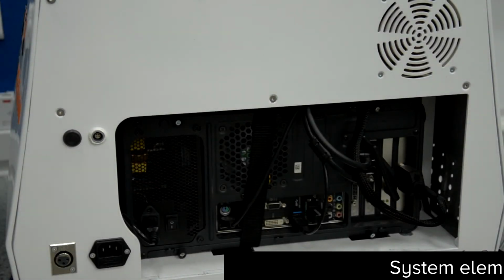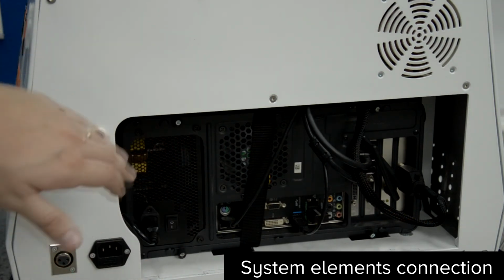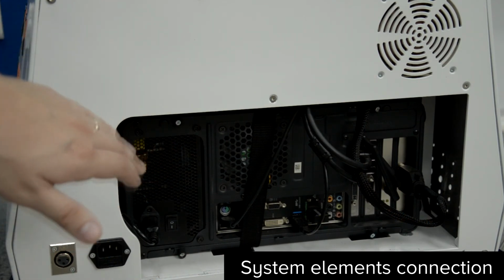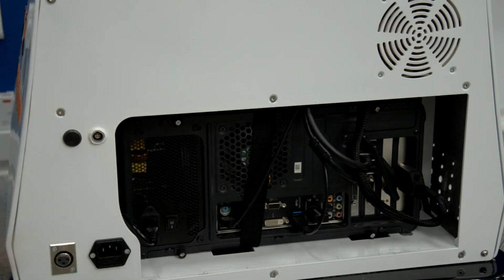HystVision Standard, rear view. Here you have your PC where you can connect your keyboard or mouse or external USB flash drive, or connect it to internet via cable, or connect additional monitors, for example, if you so desire. Don't forget to flip this switch over here to turn the PSU on and off.